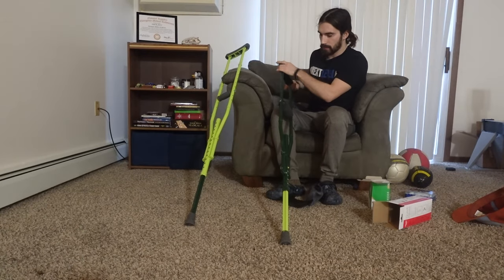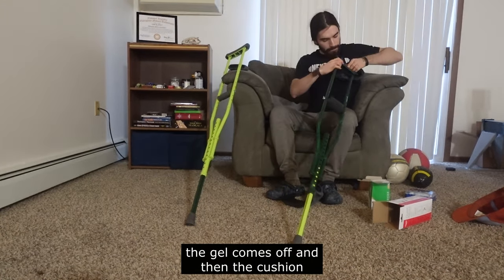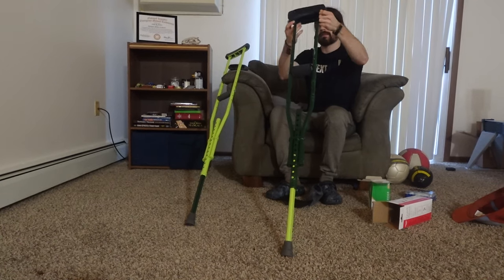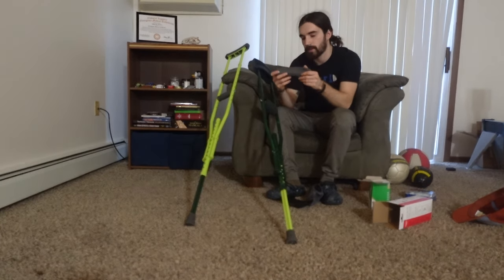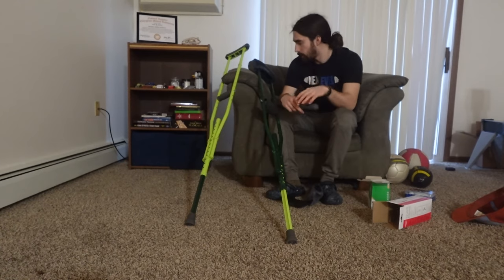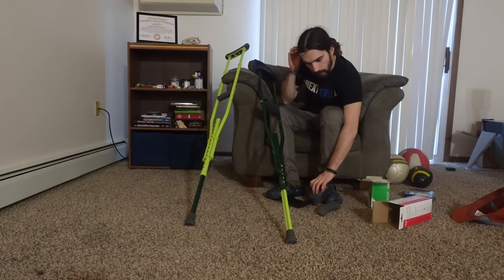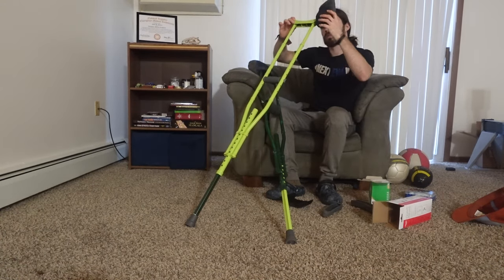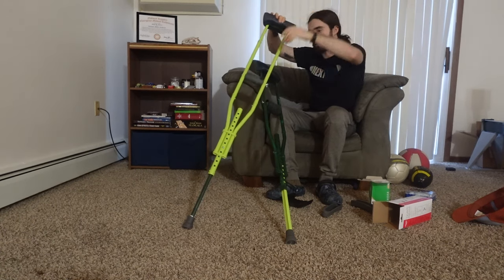We need to take this part off — the gel — and attach this cushion to it. What you have to do is actually take this gel off. The original is almost like a gun stock, right? You put the gun stock in your armpit, but this time it's on a crutch. And this is the original gel. There goes the second one.